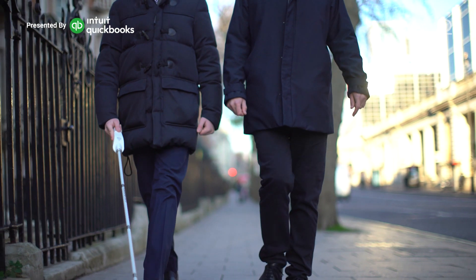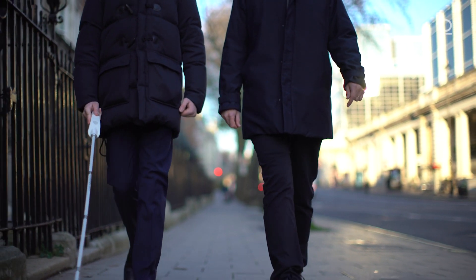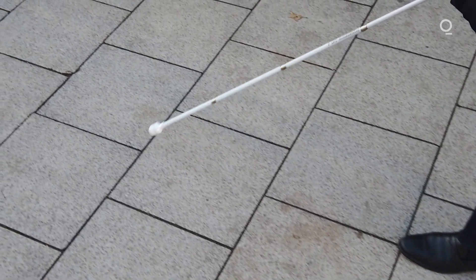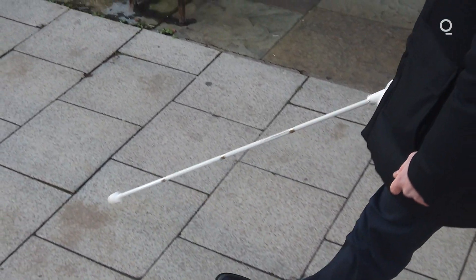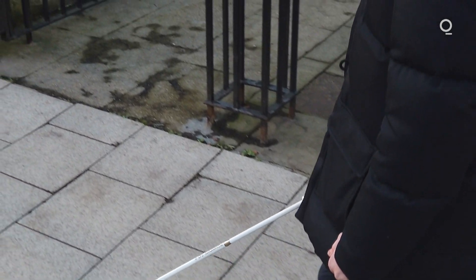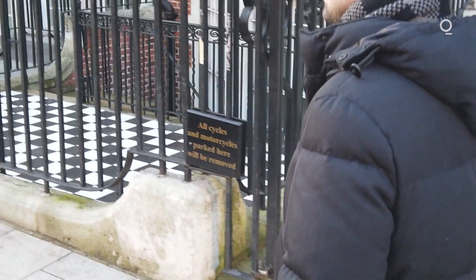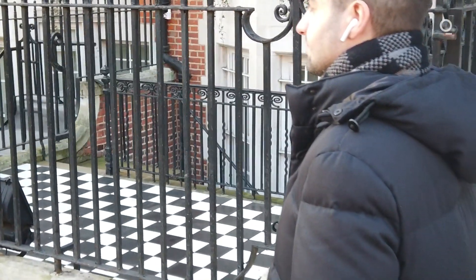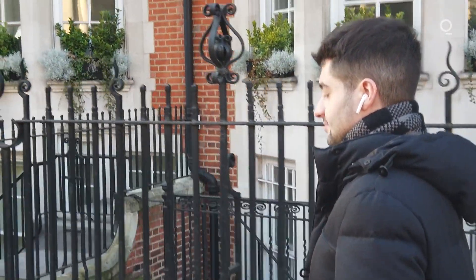One of the most fundamental tools in the entire visually impaired community is the standard white cane. At WeWalk, we've realized that whilst the tool really is fantastic, it kind of is from the stone age by this point. We've come to a world where we talk about autonomous vehicles, and yet we're still sending visually impaired people out there with what is essentially a stick. It doesn't take you anywhere. It doesn't take you to a coffee shop. It doesn't help you seek employment. It's just a stick.